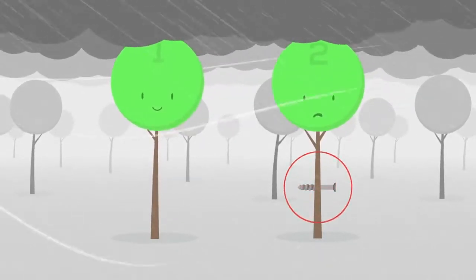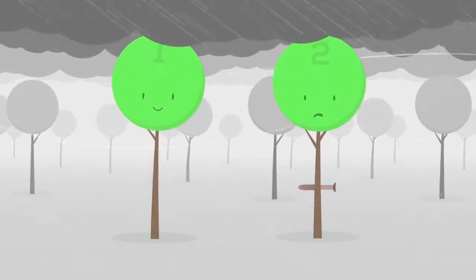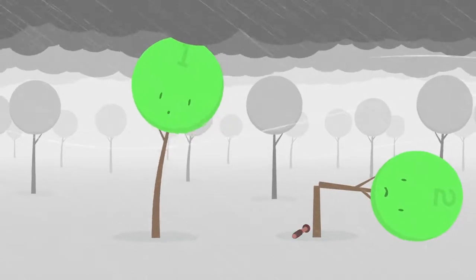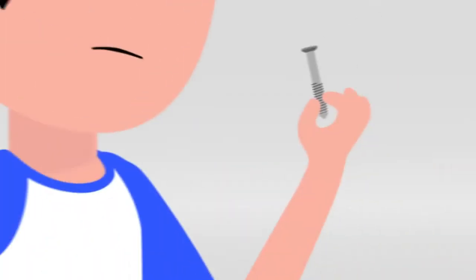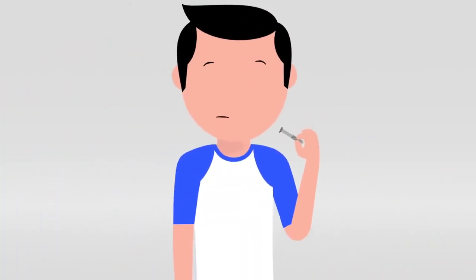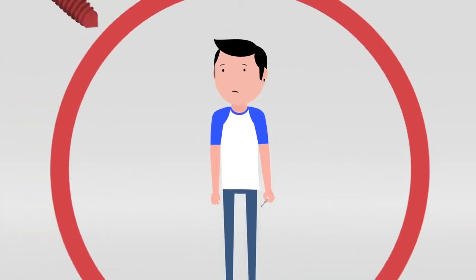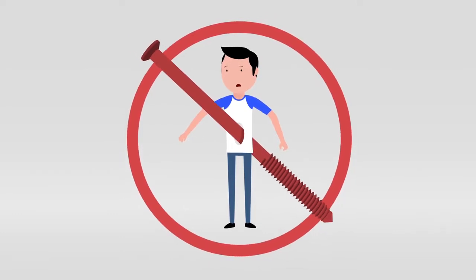The foreign object in tree number two is absolutely preventing this adaptation, which is why it was quick to break. Now consider the effect this could have on the important weight-bearing bones in the foot and leg. The simple fact is nothing in the body was designed to have a metal rod go through it.